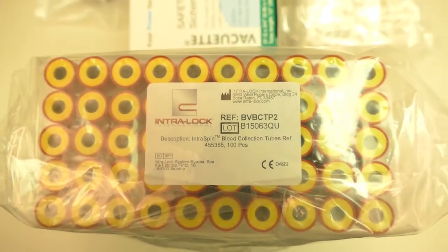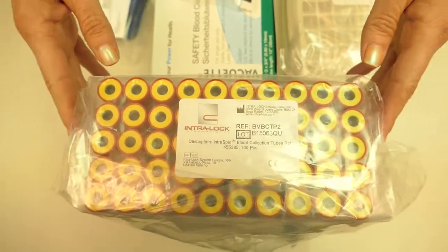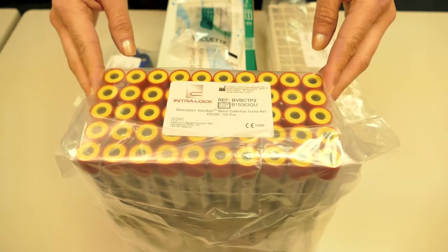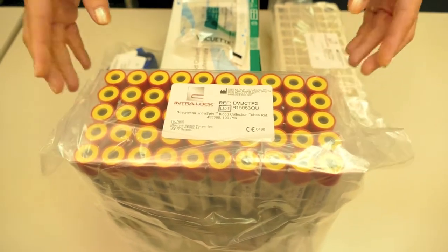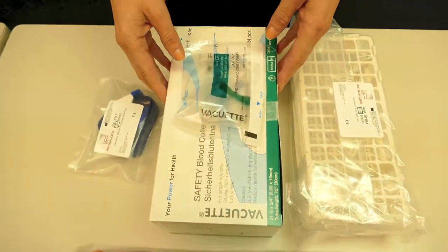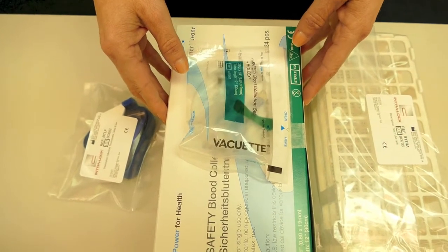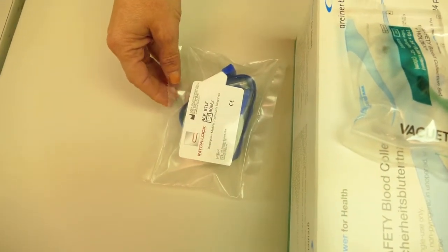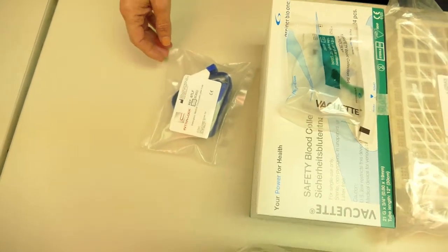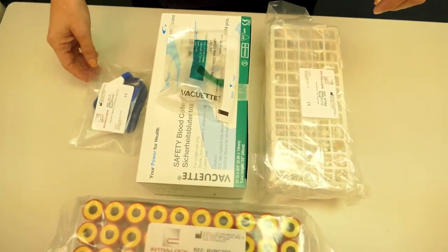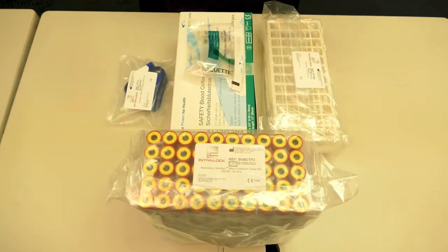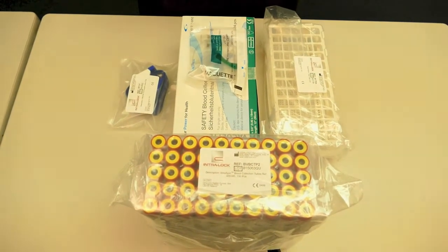Next, let's review our blood collection kit. We have 100 of the plastic 9-milliliter vacutainers. The red top indicates it's specific for this procedure. We have 24 of our butterfly vacuettes with 21-gauge needles. We have our tourniquet, which is latex-free. We have a convenient tube rack, which is autoclavable, and all of these components can be reordered through Intraloc, ensuring you have the correct supplies for this protocol.